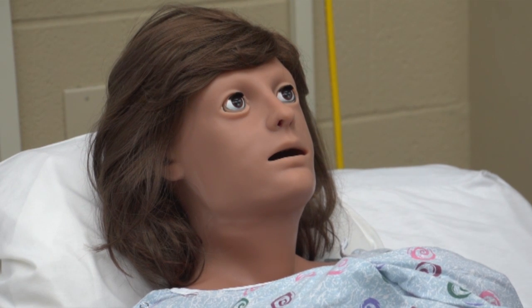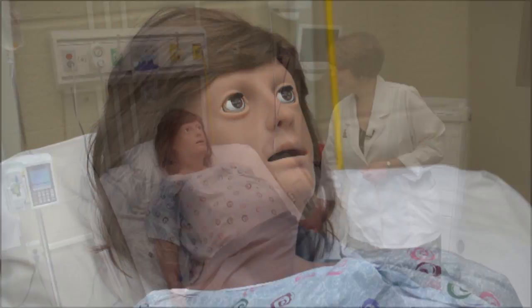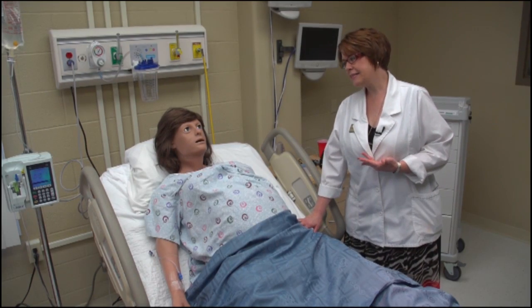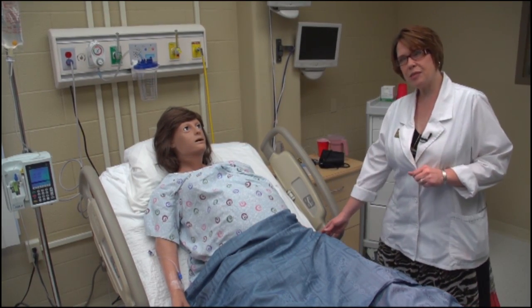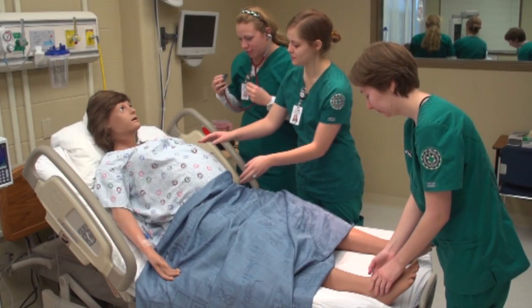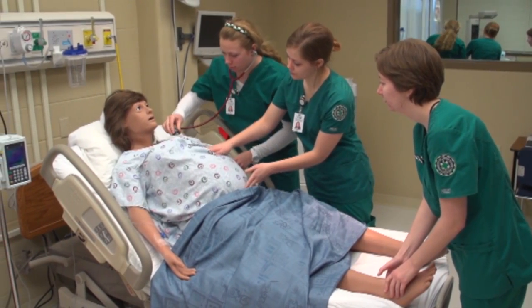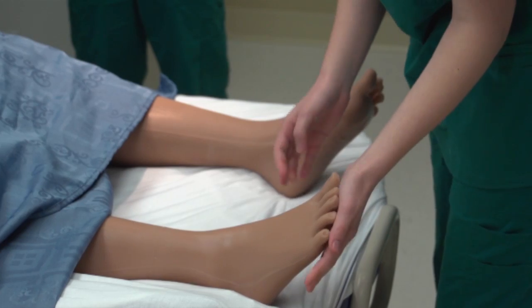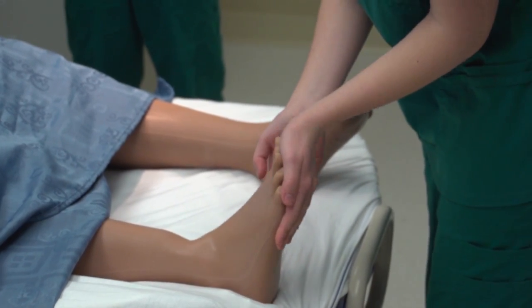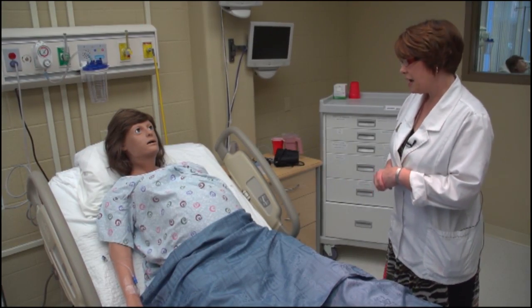Good morning, Victoria. How are you doing? — I'm okay today. She can respond to the students' questions, and that helps them suspend that disbelief that she's just a doll or she's not a real person. So they communicate and we encourage them to talk to her, not to us back in the control room.